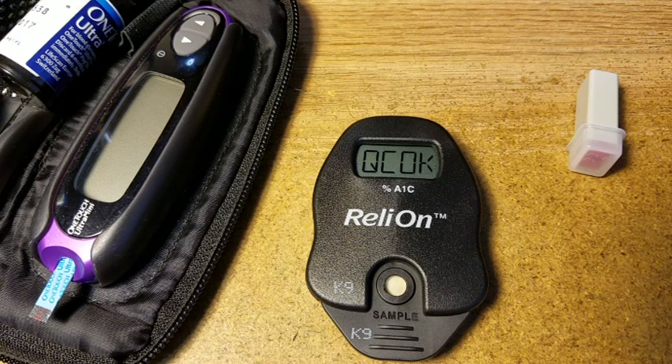I'm sure the next one in three months will be a lot different. We'll see what the lab says — I'll wait until I get the lab results to post this video, and then we'll have the actual comparison. Today is Tuesday, May 31st, 2016, about 10 in the morning. When I get the lab results, I'll add them to the video. But yeah, 7.4 — that's a little higher than I thought. Last time it was 10.2, and this is 7.4 without any medication whatsoever.